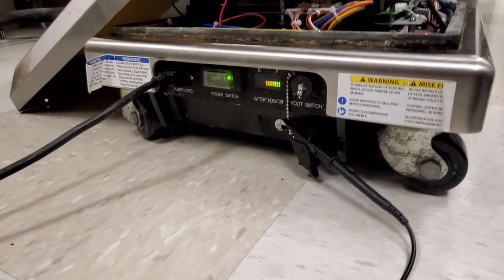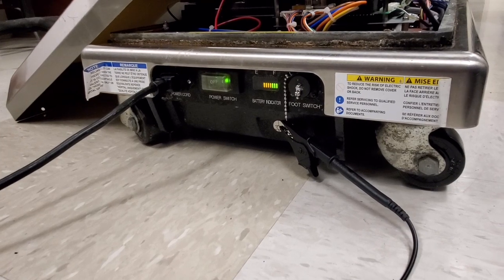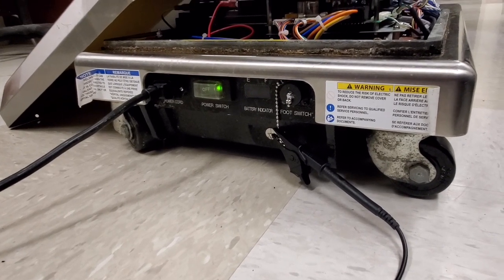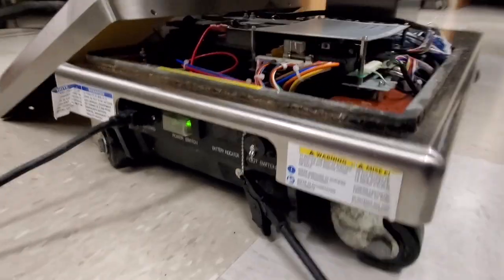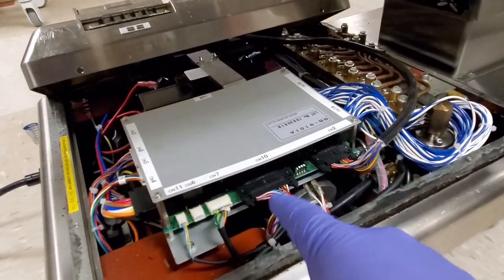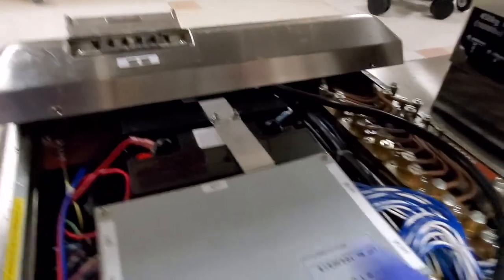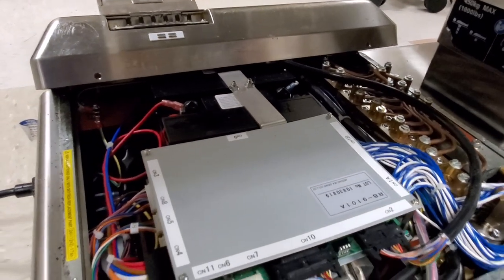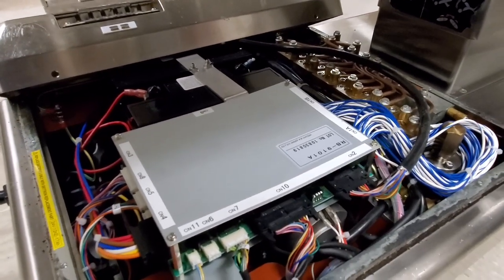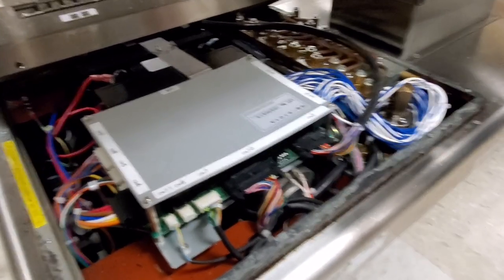You can see as it applies mains, I am going forth and charging. See how it's got the scrolling LED indicators — you can hear that it has activated the charge circuit. That's the cooling fans. I also replaced the batteries — brand new batteries. That's part of a three-year or four-year PM to change out the batteries anyway, but good opportunity to do it since I'm already in here.